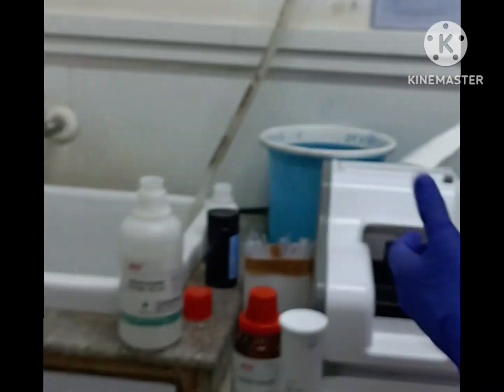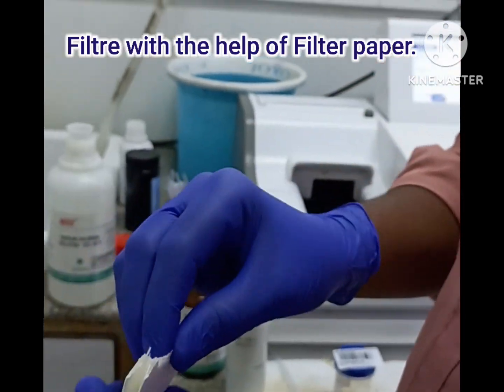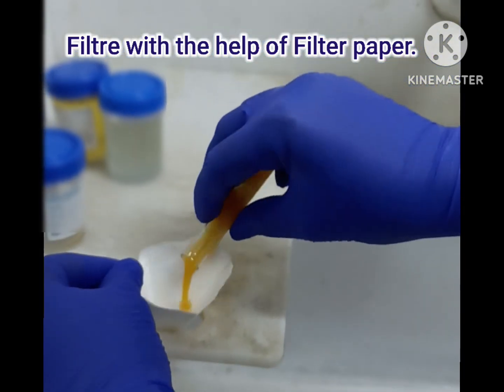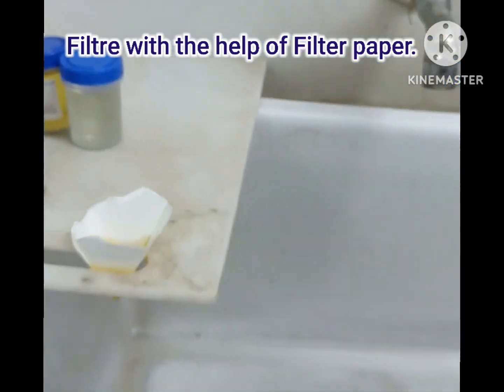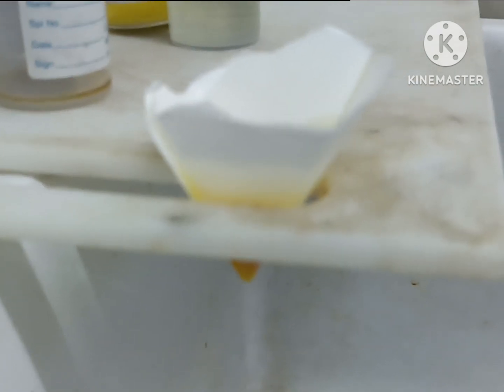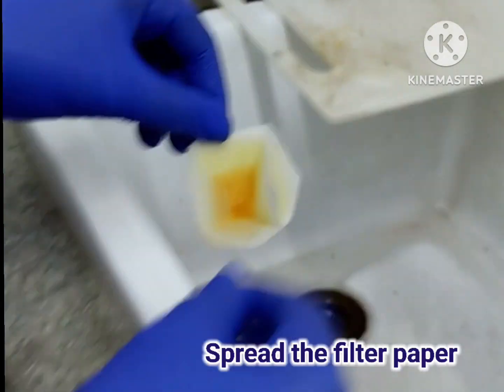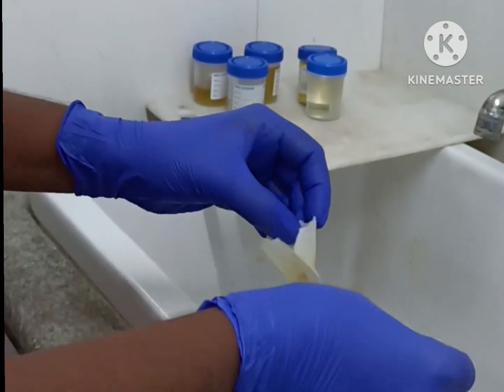We will start with the filter paper and the mixture. We need to filter the liquid — we pass all the liquid through the filter paper, placing the precipitate on the filter paper and allowing the liquid to pass through.